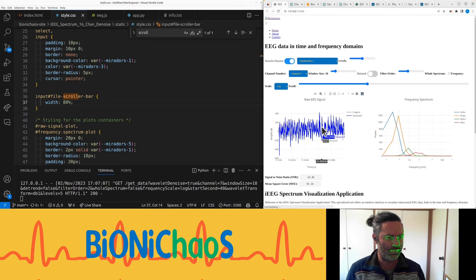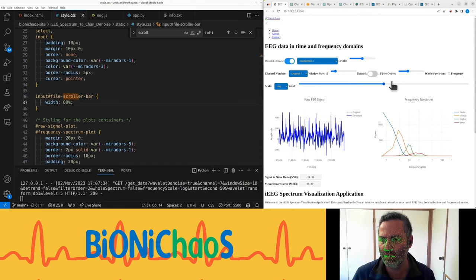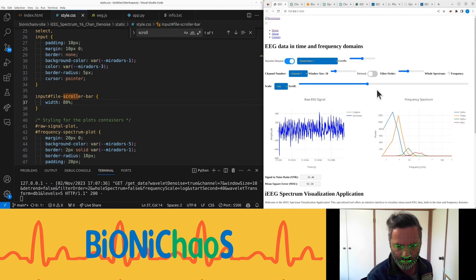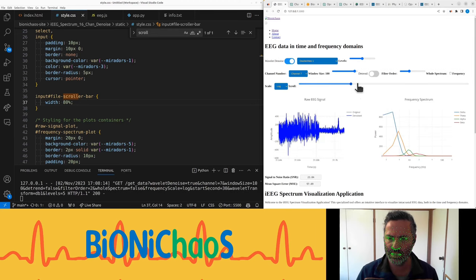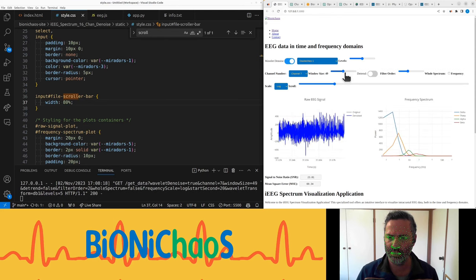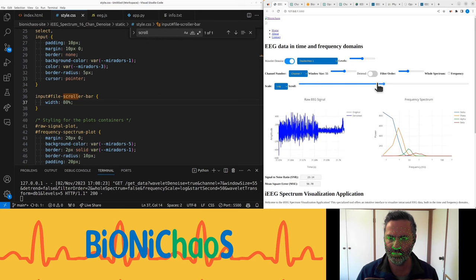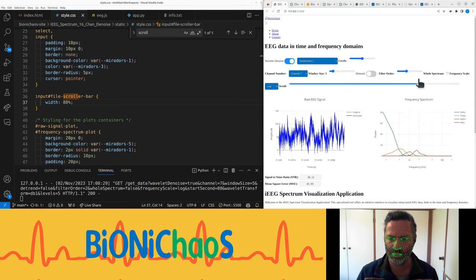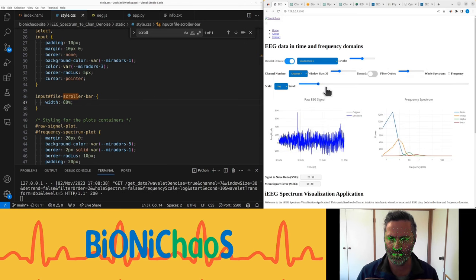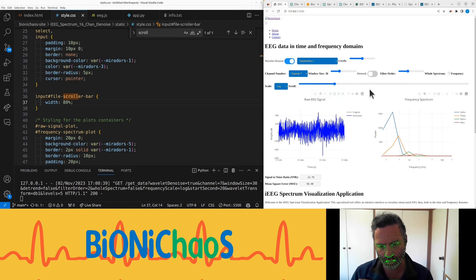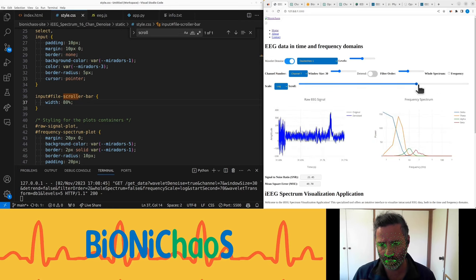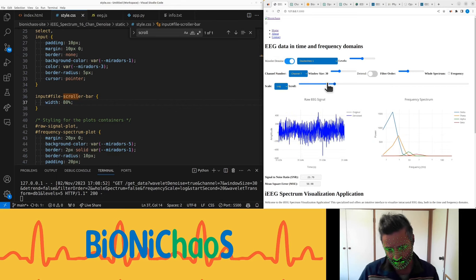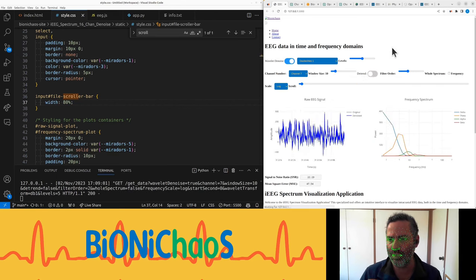I like it to be pushed to the right because we want the scroll label to be on its left all the time. Okay that's working. A reminder this file has a seizure in it and so if you place the window size around 50 and scroll through the seizure, if you can have a more detailed scroll the problem with that is that the amplitude is automatically adjusting.